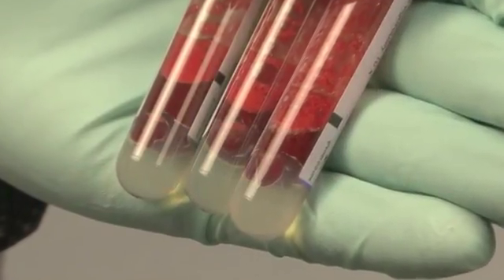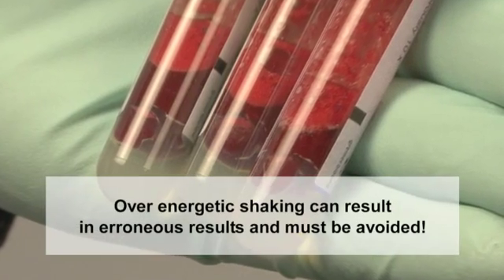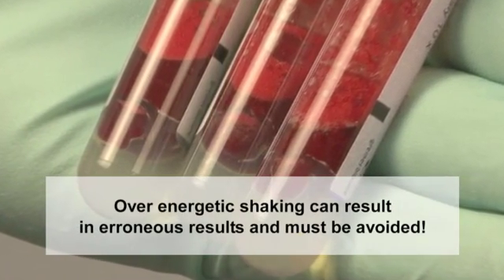Over-energetic shaking of the tubes can result in the gel dislodging and mixing into the blood. This can cause erroneous results and must be avoided.